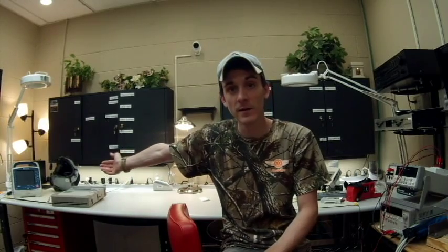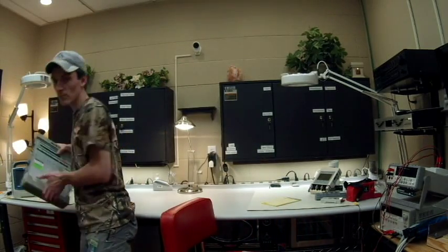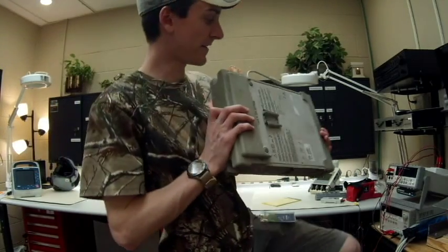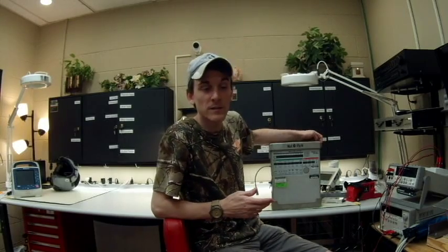The two more complicated units are the pilot's helmet ventilator and our defibrillator multi-parameter monitor. I enjoy doing them but they're a little more complicated. First up is our ventilator — we currently have the LTV 1000 by CareFusion. Our neighbors at Children's have the LTV 1200 and they really enjoy that; we enjoy ours too.